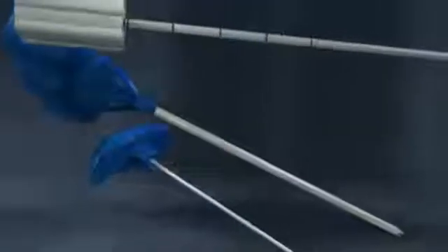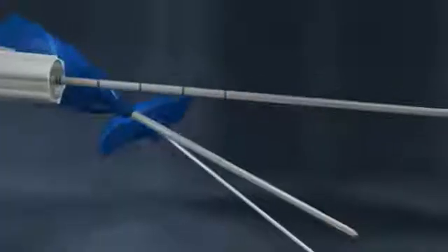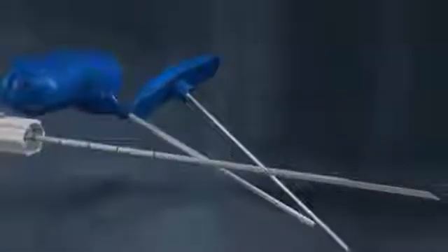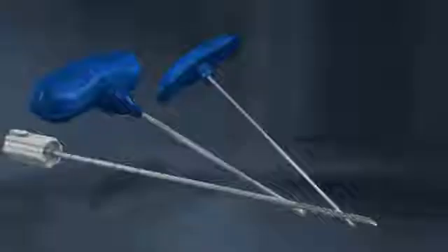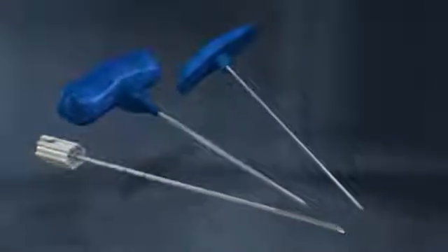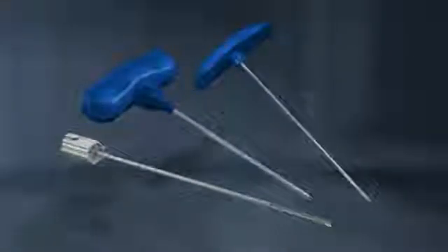It's all made possible by the advanced engineering of the Jamshidi Crown Tip Cannula, Trocar Stylet, and Marrow Acquisition Cradle. Together, these components optimize bone marrow biopsy procedures.